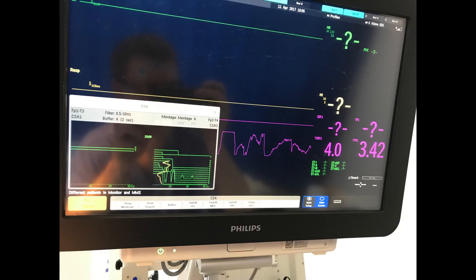If at any stage an electrode becomes loose, its impedance will exceed the set limit, the trace on that side of the CSA will disappear, and the SEF and total power values on that side will be replaced by a question mark. If this happens, bring up the montage as you did during setup — it will highlight the problem electrode and help you fix it.